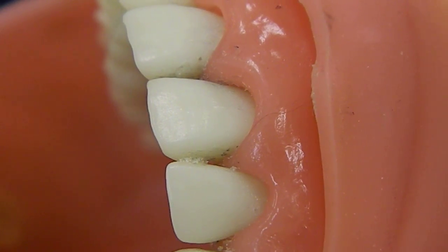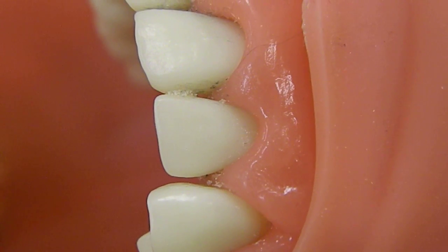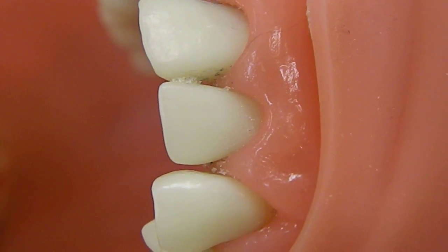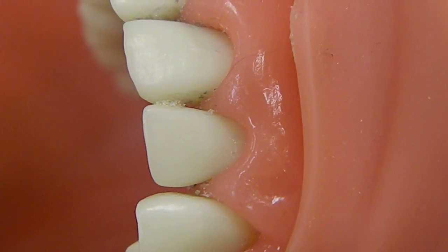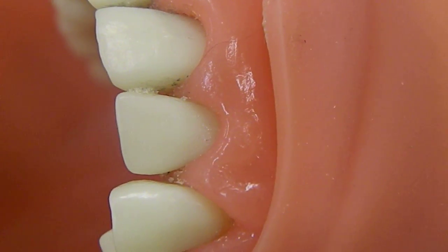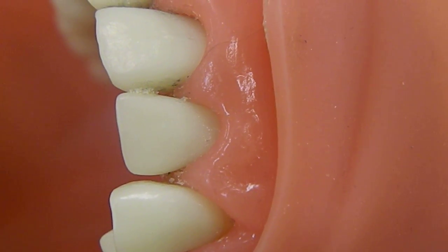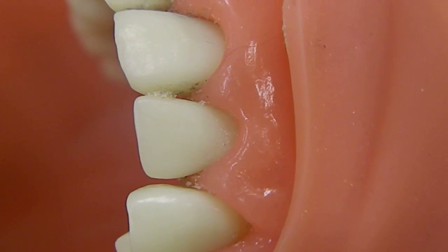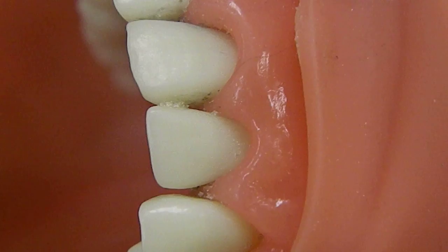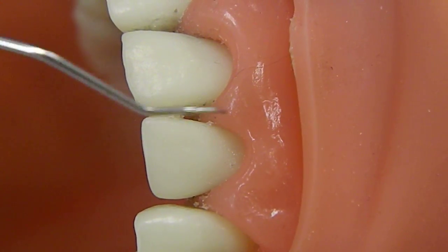So today we're going to be talking about how to determine which end of the instrument to use that is correct. So we're going to be looking at a couple different things with the Explorer. However, each instrument uses its own way to determine the proper end of the instrument to use on the tooth. So with our Explorer, we're going to be using today the long axis of the tooth or of the root.